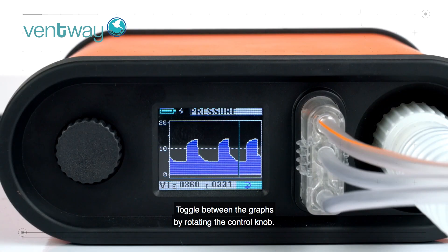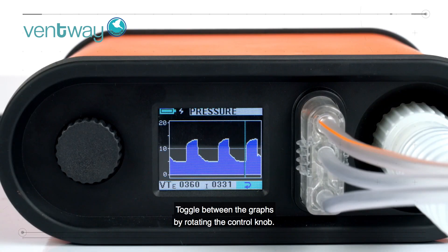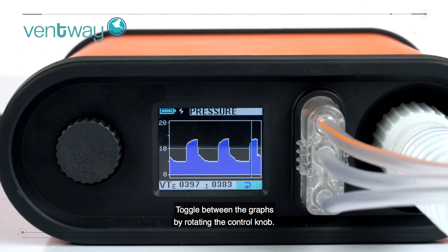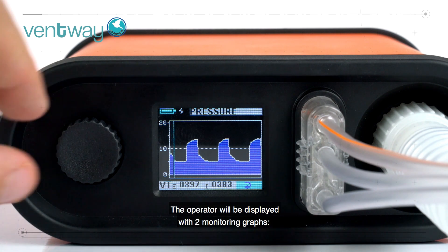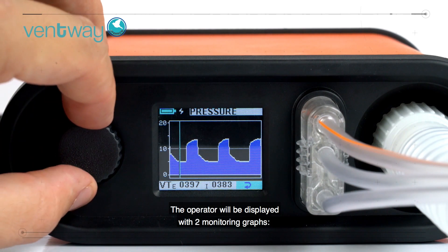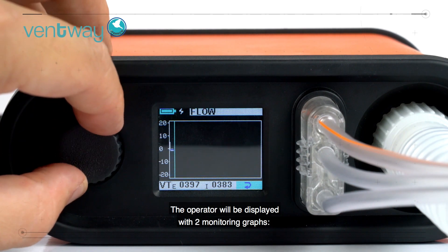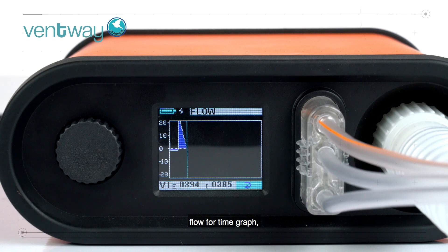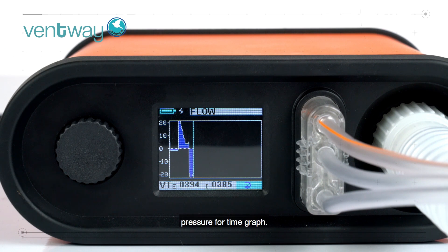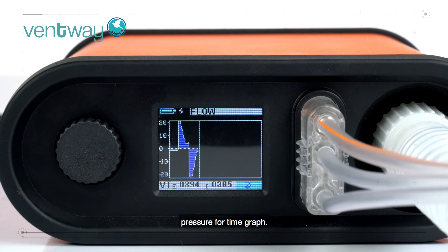Toggle between the graphs by rotating the control knob. The operator will be displayed with two monitoring graphs: a flow-for-time graph and a pressure-for-time graph.